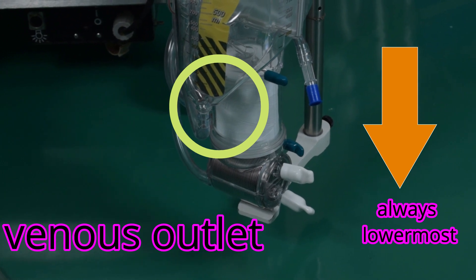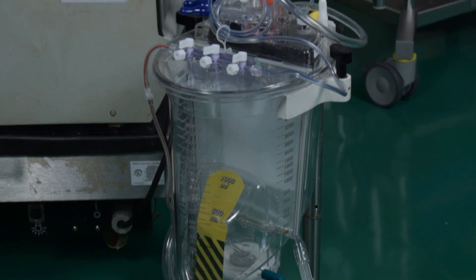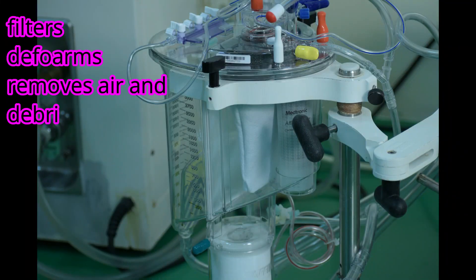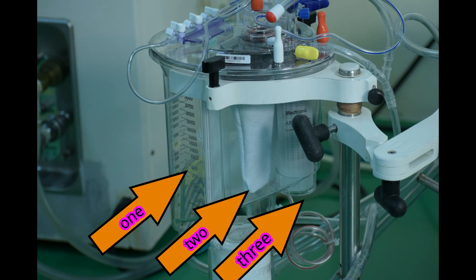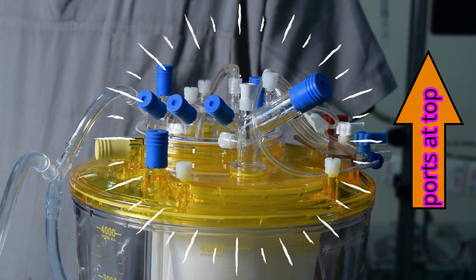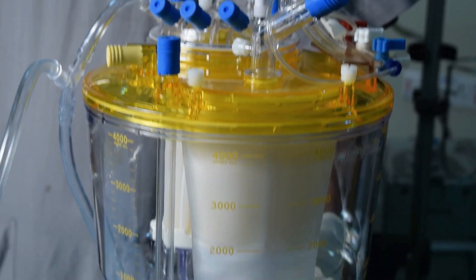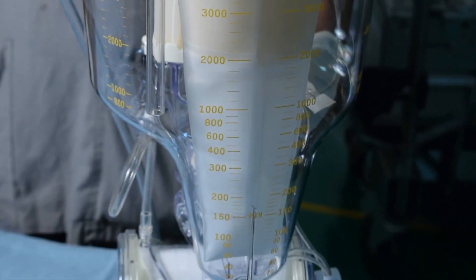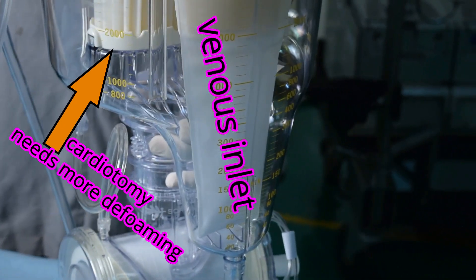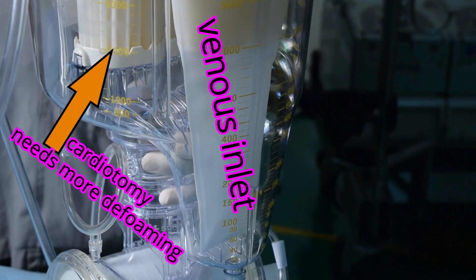The blood that is sucked through the cardiotomy goes through a separate filter and defoamer before settling in the reservoir to be propelled to the oxygenator. The reservoir component of the CPB circuit therefore provides highly efficient filtration and defoaming functions and also removes foreign particles. Filters and defoaming compartments in the venous reservoir have air-trapping pores located at the highest level of the blood flow path to allow passive removal of air. This is an open system, and air vents automatically. Venous blood has a high flow rate and is clean; it needs only relatively little defoaming, mostly for removal of micro-air before being stored in the reservoir.